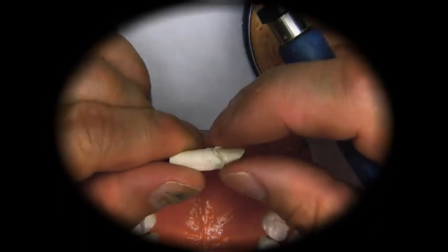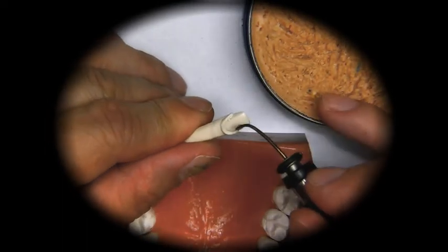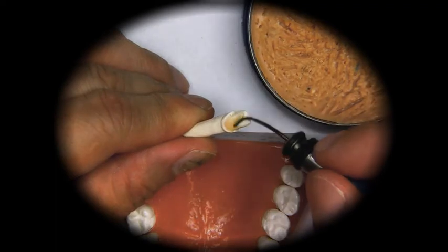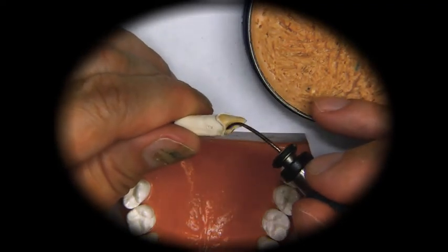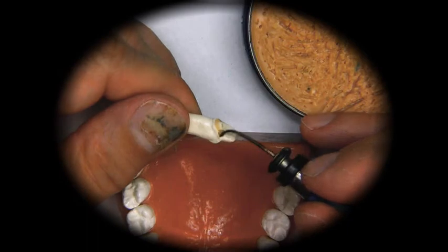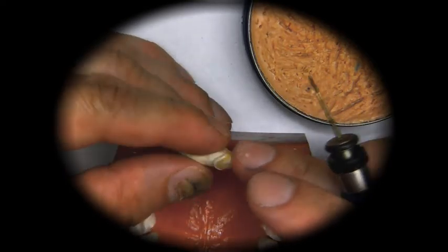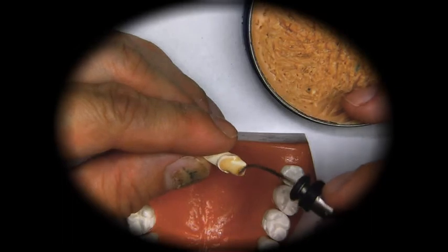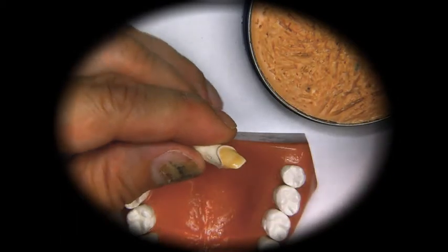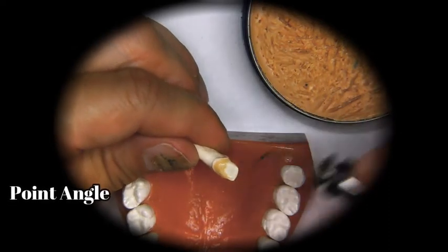The first step we will take is to apply a coating of wax on the preparation area using a waxing spatula. We're going to place an even layer of wax over the surface of the die, making sure that we do not go over the margins. If we go over the margins, that will create an undercut, and if we try to take the wax off, it will break. In this case, we are not going to try to take these wax-ups off, since our main goal is to learn the anatomy of the teeth.